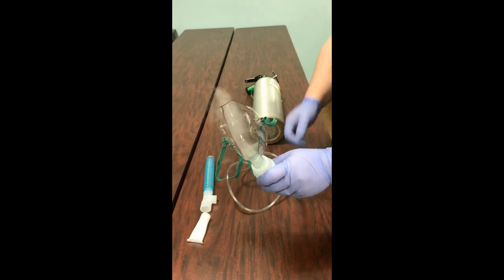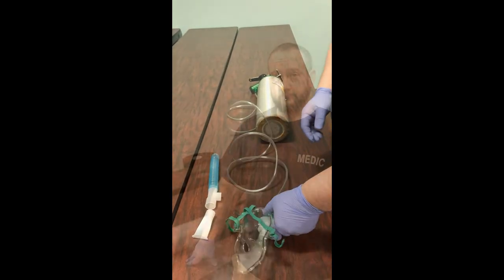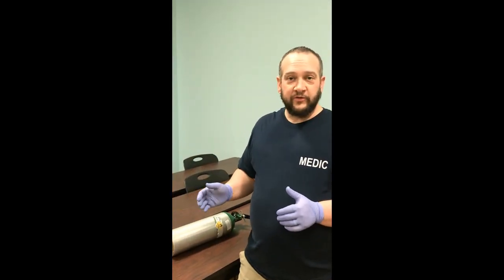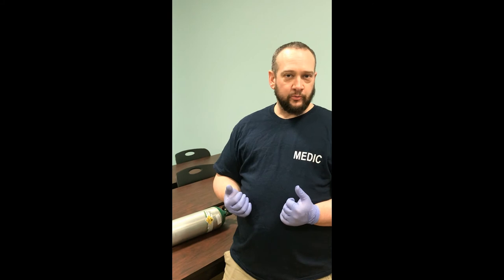One of the benefits of the nebulizer is it allows the patient more exposure to the medication. When we assist someone with their metered-dose inhaler, we're asking a patient who's struggling to breathe and having a bronchospasm to take a deep breath, take that puff of albuterol, and then hold their breath for as long as possible.